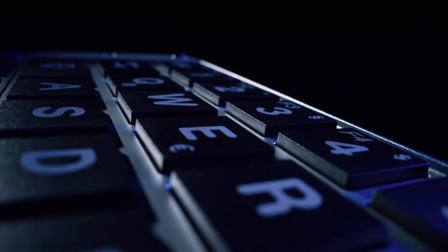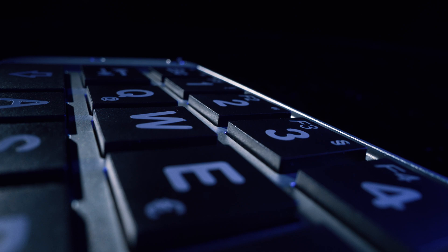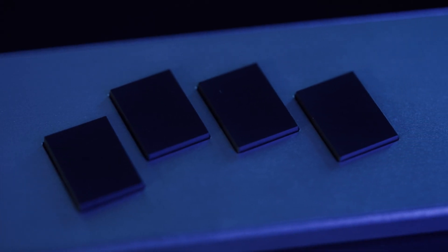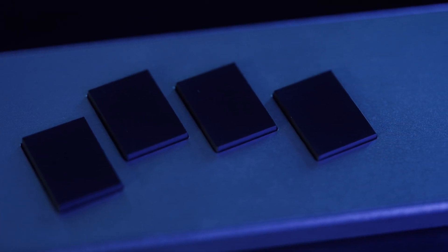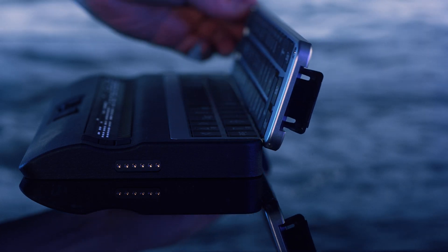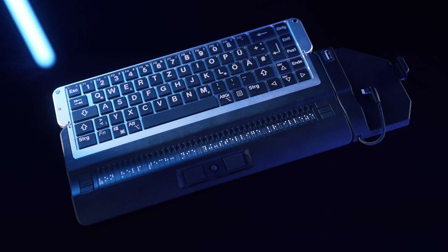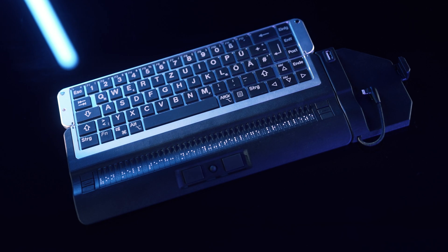The choice is yours. Write in Braille or just flip it open and start typing with a QWERTY keyboard just like on your PC.